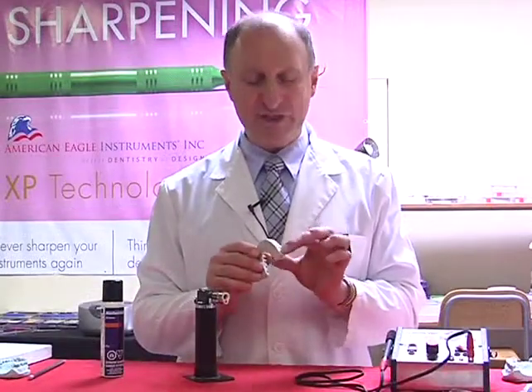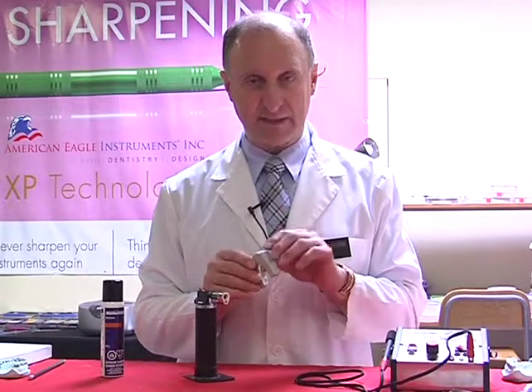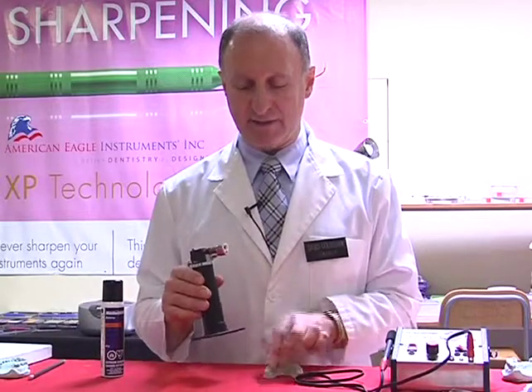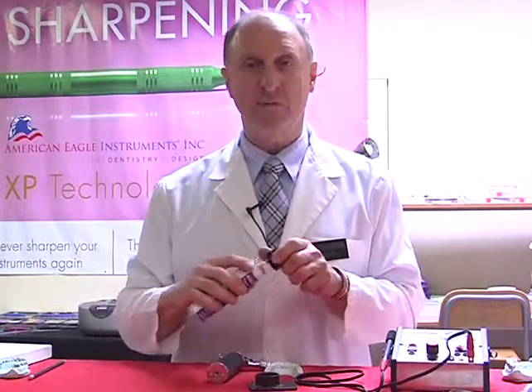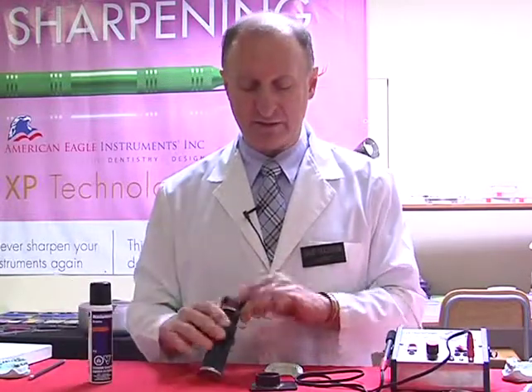To remove any sharp edges of the bleaching tray itself, leaving this firmly seated on the model, we're going to use the microtorch. Now the microtorch is something that uses butane gas. Looking at the base, it's refillable, so that we can always refill should we need to. Something you can get from Canadian Tire, one of the hardware stores.